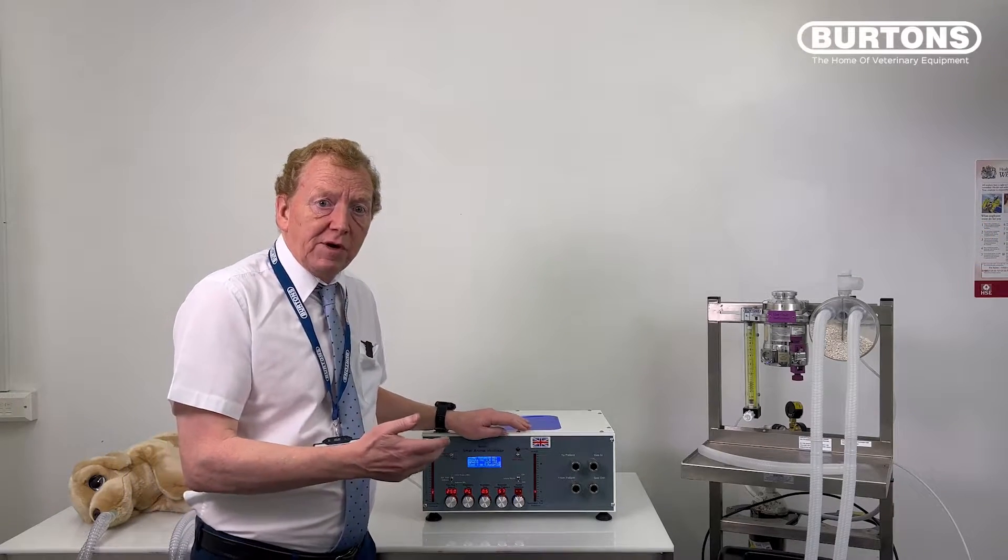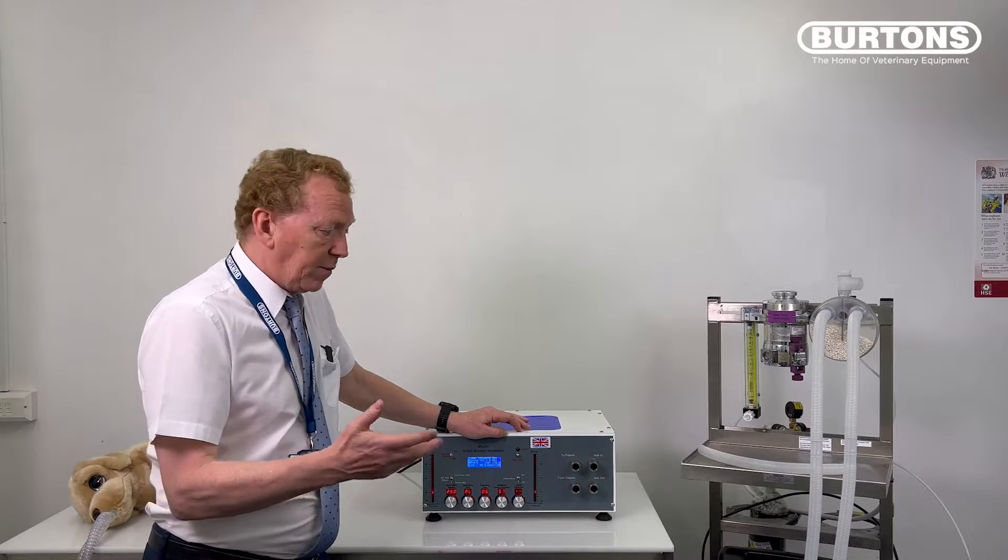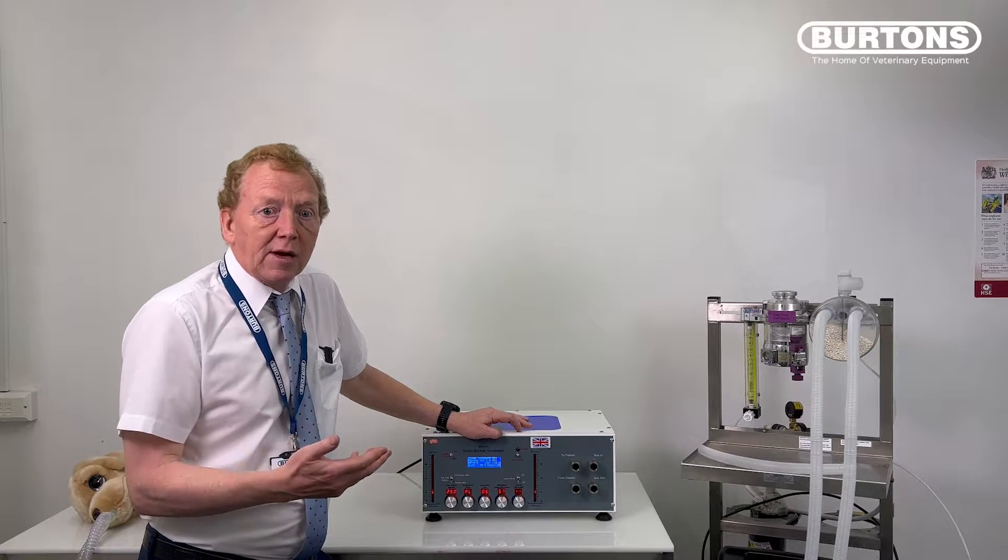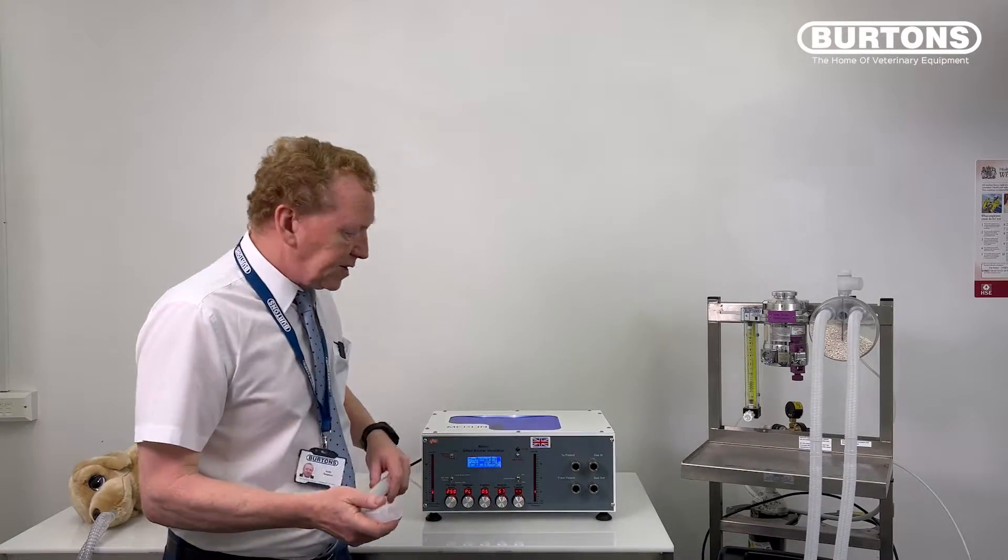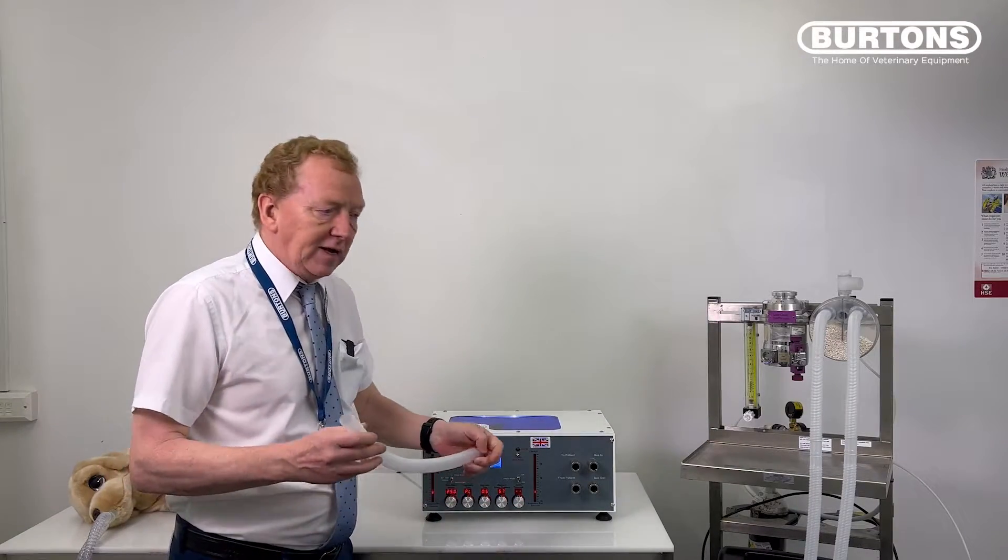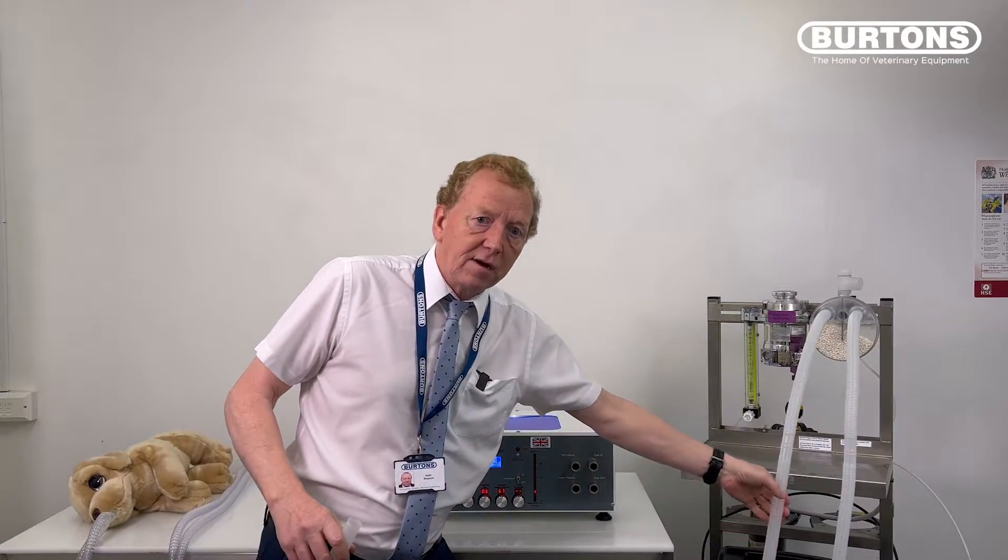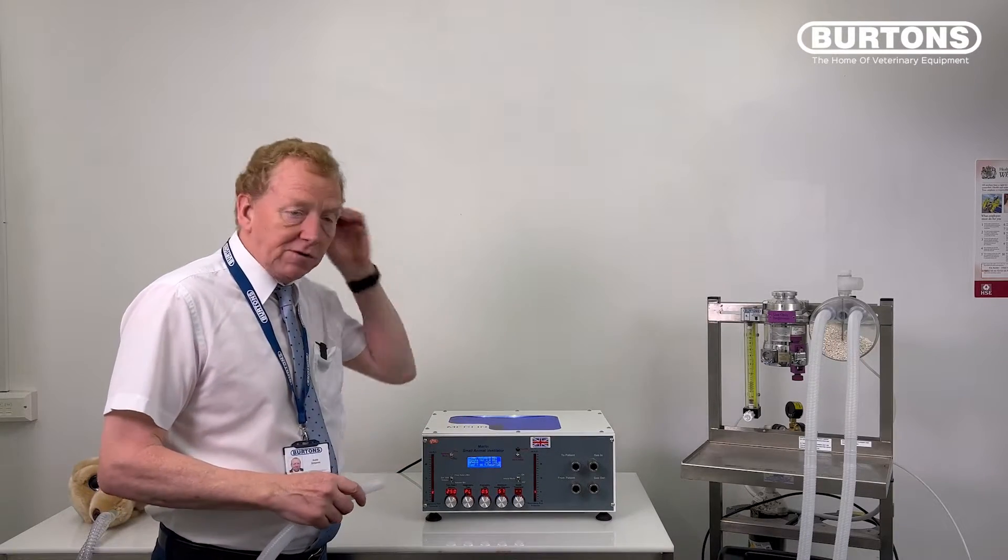The second check for the day should be to do a leak test, which is very simple to do. We're going to do a leak test and a very quick dynamic test. They take a couple of minutes if that, and you don't even have to be present. I'll show you the leak test. We're going to take a short piece of tube—it can be any length—it doesn't affect the results, it just takes longer to get to the result if you use a longer piece.